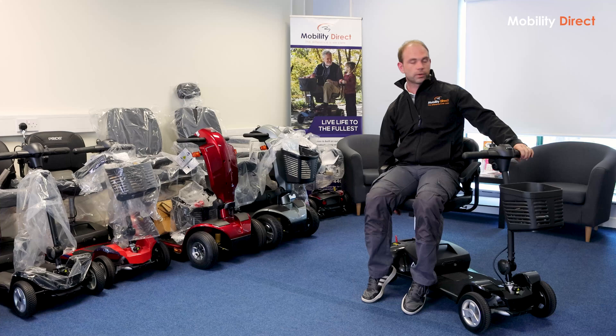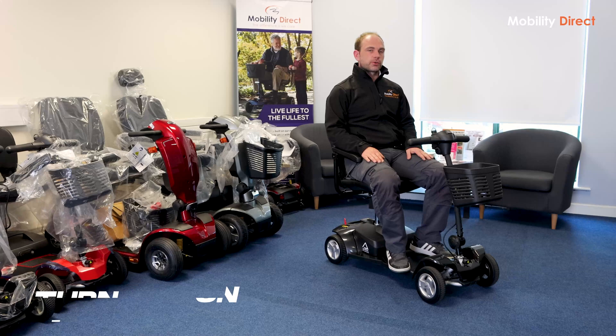You just want to turn the seat out to where you're standing, which makes getting in and out much easier and safer. So you can sit in like this, hold on to the handlebar, turn yourself around, and it just clicks into place.